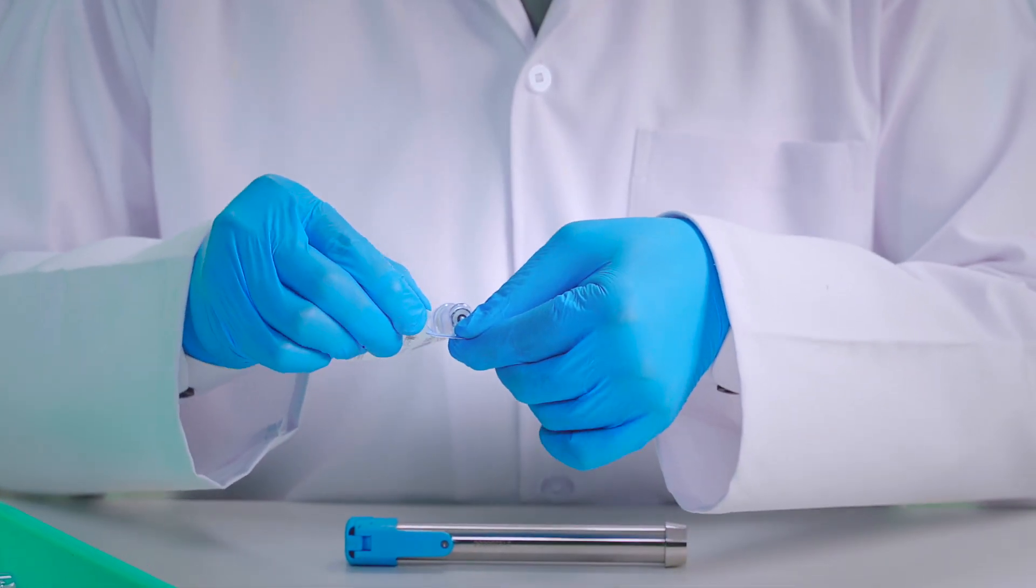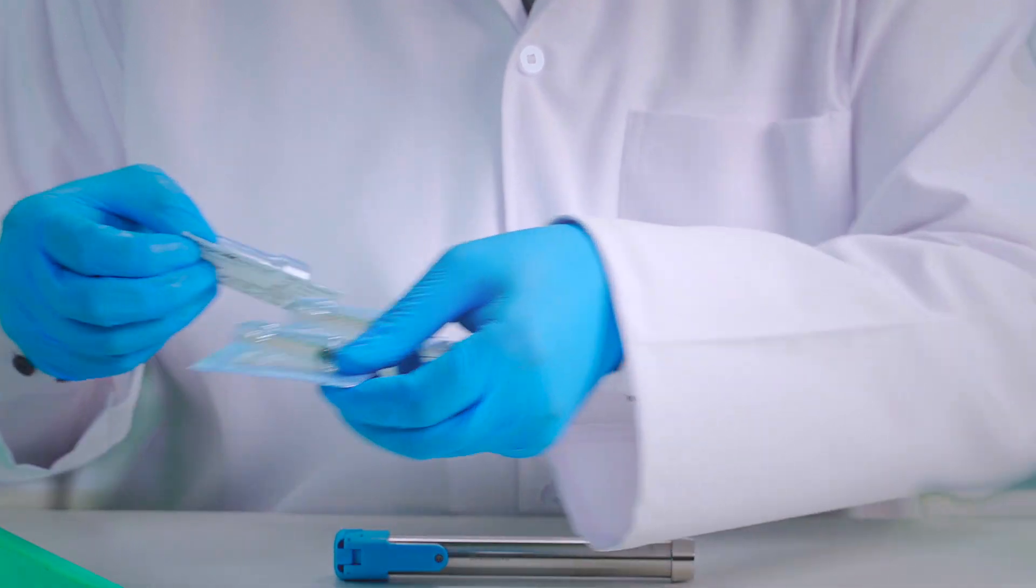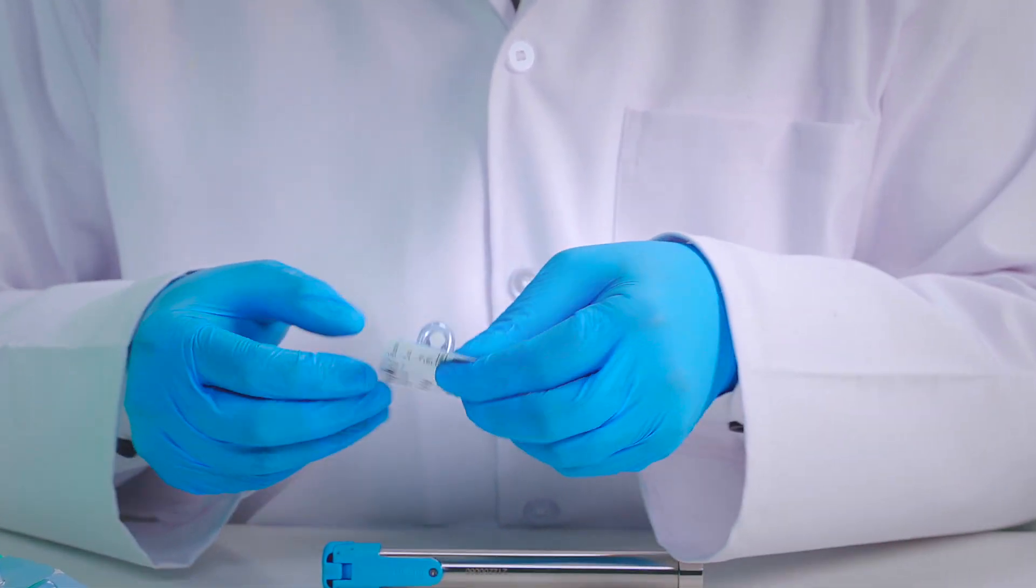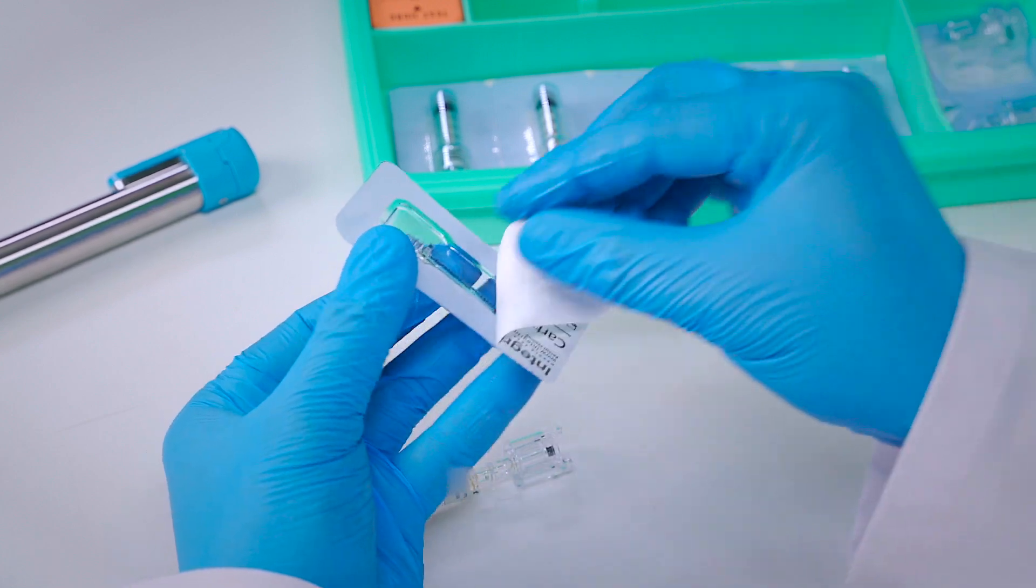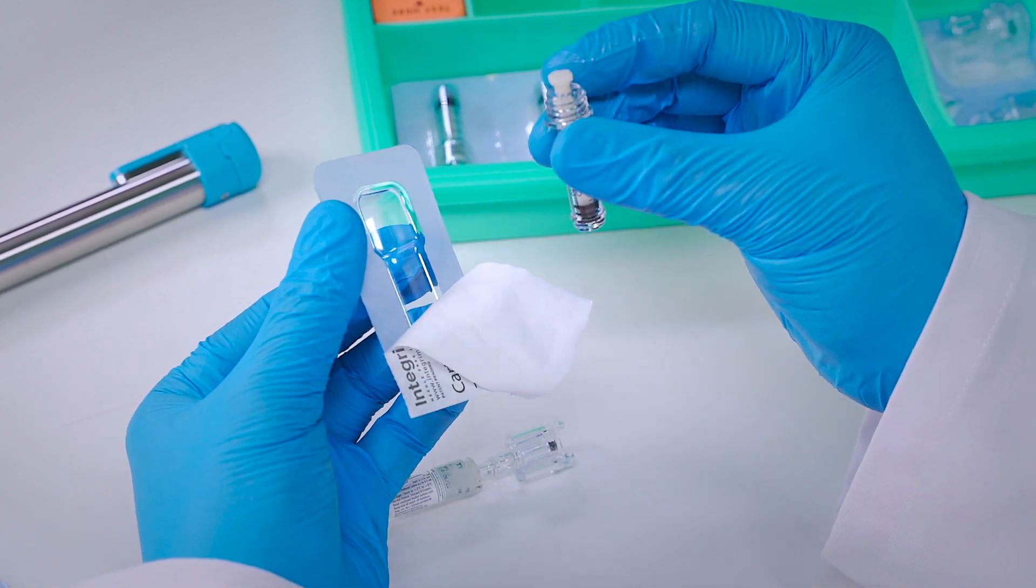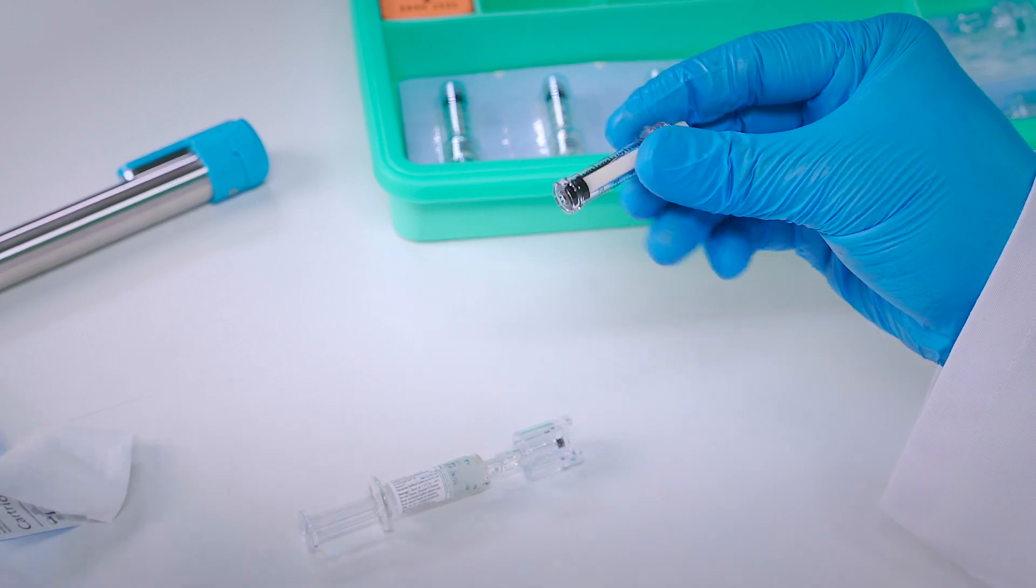And now, remove the cartridge. To ensure sterility, make sure to remove it from the screw end and not from the tip end.